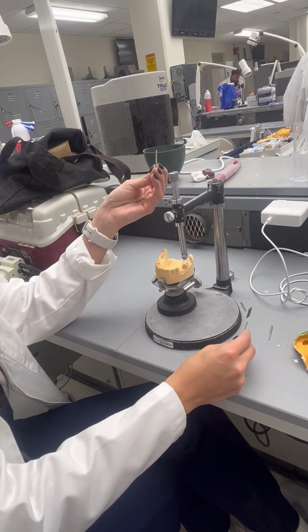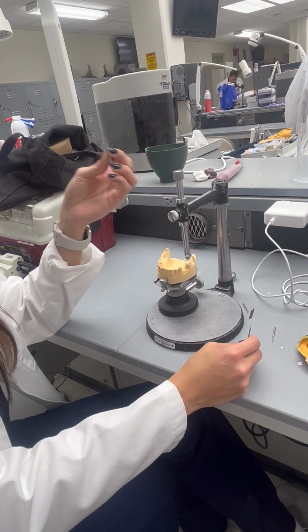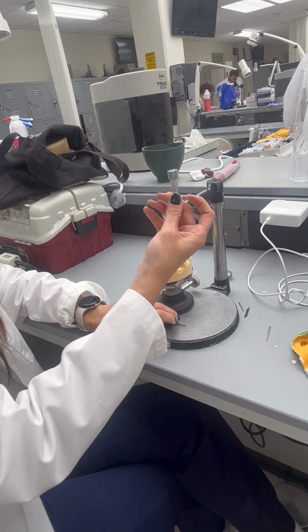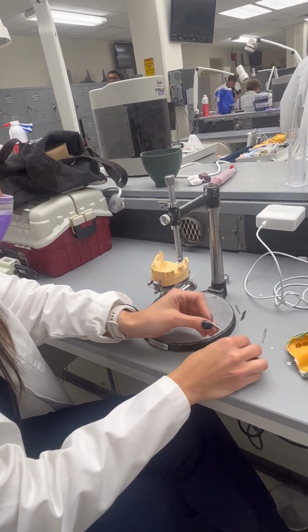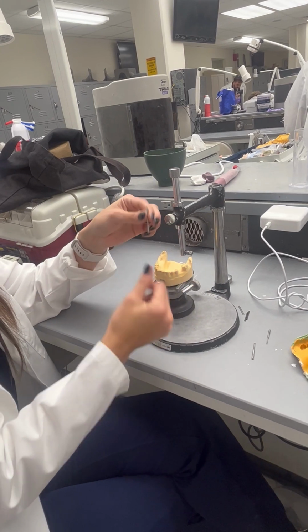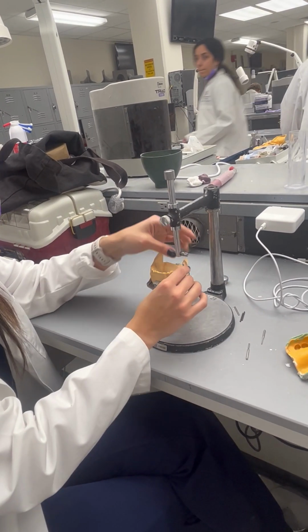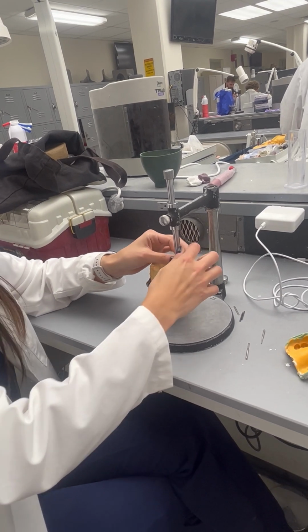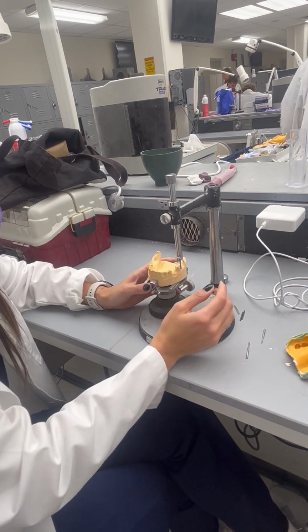So this is for cast metal clasps like the CC, RPA, RPI, Akers. This is for wrought wires in general. So you're always trying to find this for something with cast metal. Wrought wire clasp, we usually use for periodontally compromised teeth mostly.